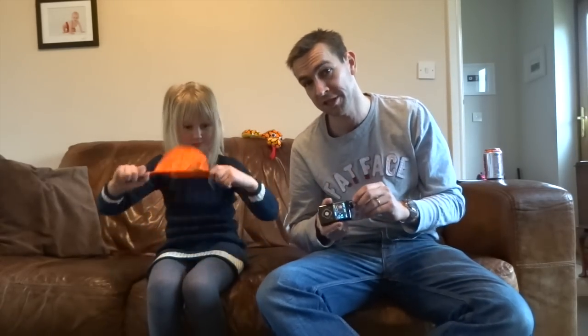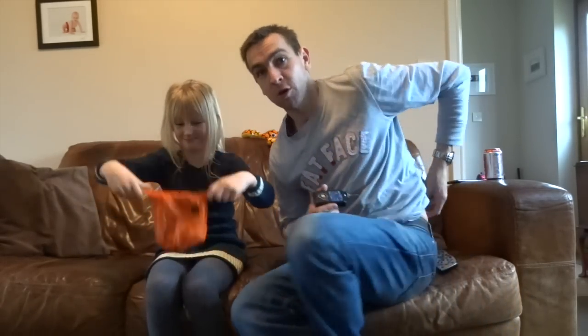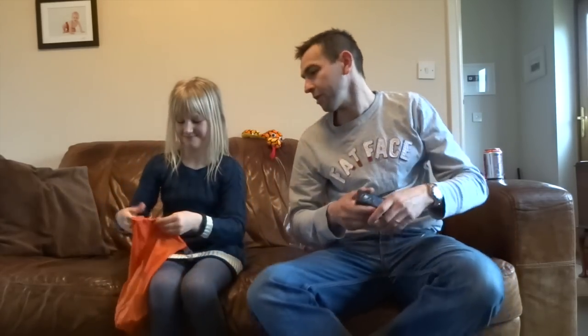It's now time for a set change, so we're going to change the inside of the pump, change the insulin on the outside, and also the bit that connects to my body. Martha, open up the bag.